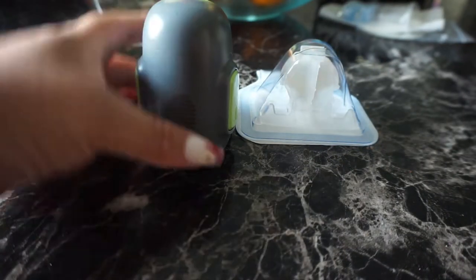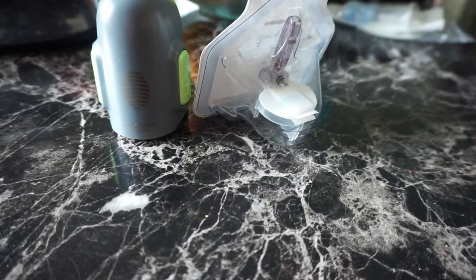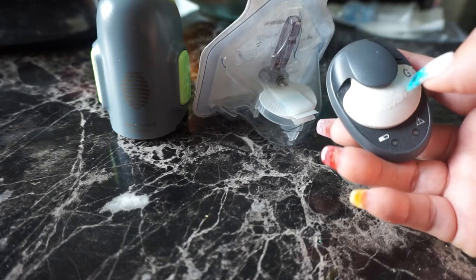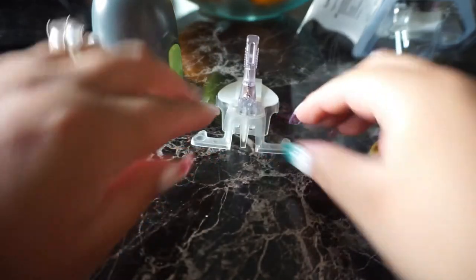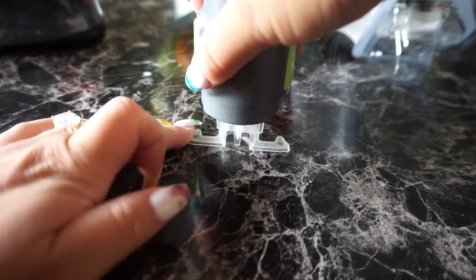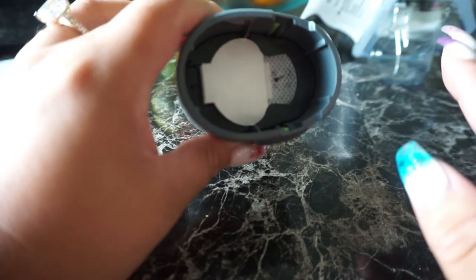This bulky thing right here is going to help me apply my little bumblebee. I call it a bumblebee because when I was taught how to use it, they told me it looked like a bumblebee. That right there is a needle — I'm going to apply my sensor. This sensor basically checks my blood sugars every five minutes. I open it up — this is it, looks a little creepy and weird. I push this down and take it off. This is the needle that's gonna go inside me. It sounds huge — I know. I remember when I was learning how to apply this, I was sweating. I can do needles on other people, but I cannot do needles on myself!